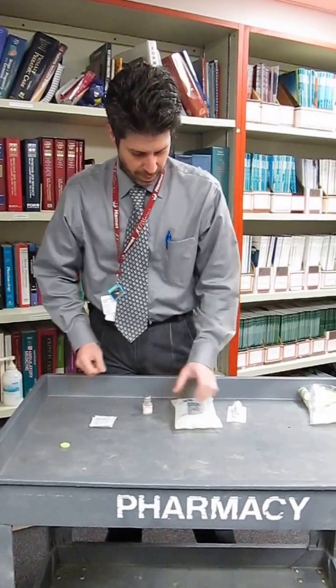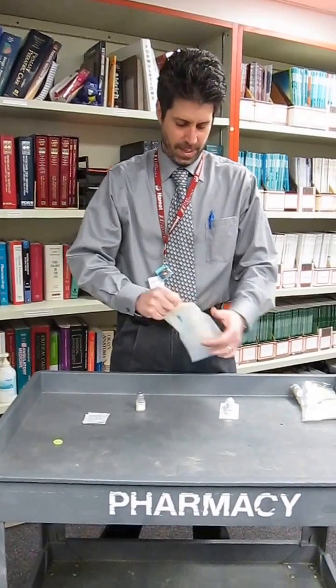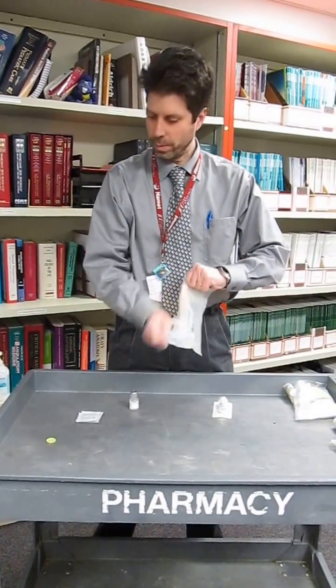First, we want to open up our products that we're going to wipe down with alcohol, with an alcohol wipe.